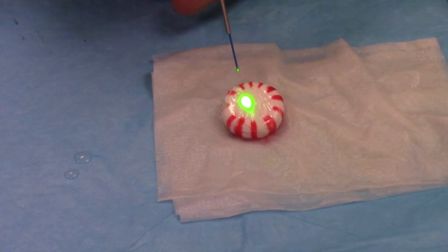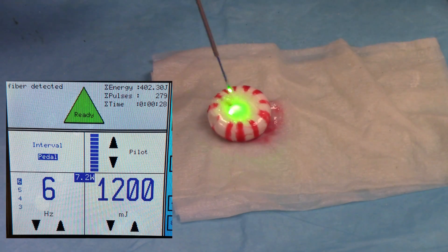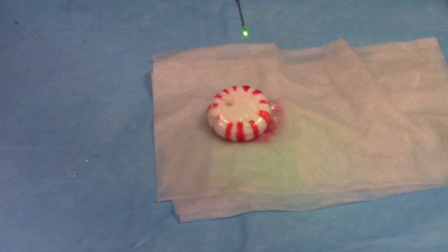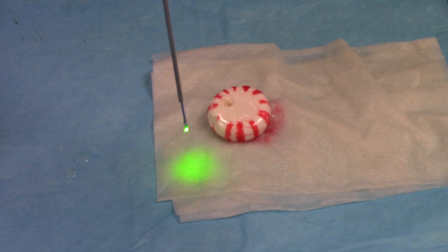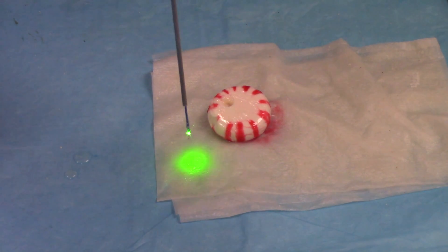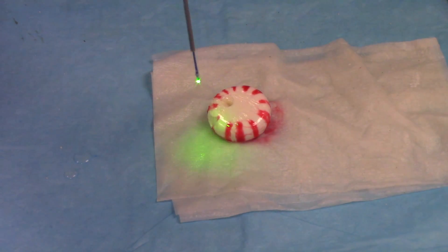Laser's ready. It's all this sugar in here that melts — you can even set this stuff on fire if you want, but this is not typical of a medical use. It will however mess up the tip some. Okay, I pull it out, and now you can see if I try shining this light down here it's much more diffuse where the sugar candy has gotten on it. So let's fix that — I'm going to take a picture of the tip as well so you can see it.